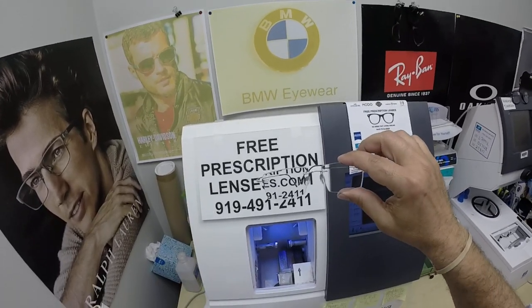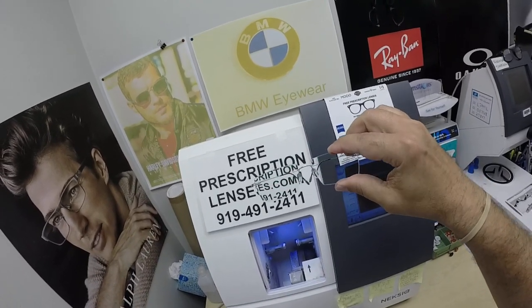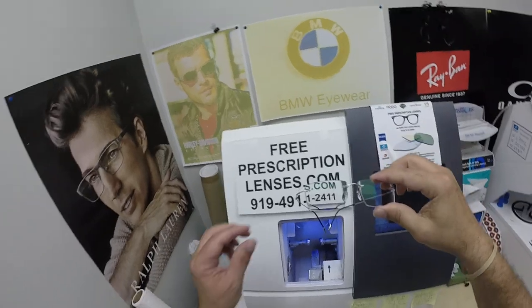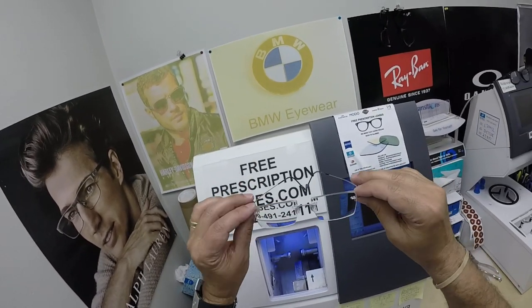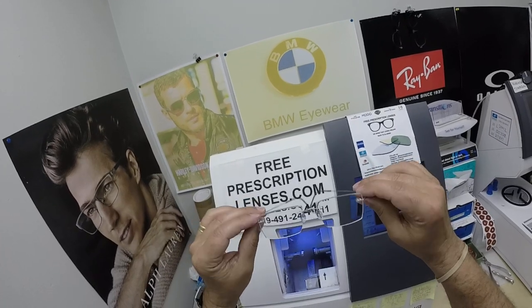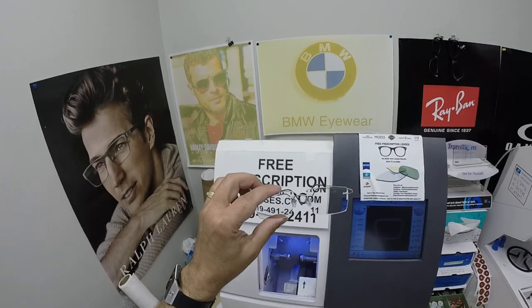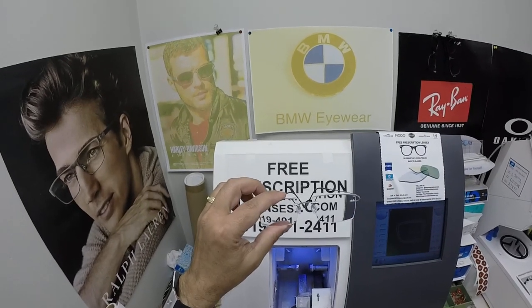He is Mr. Green, so he got green lenses with Duravision Chrome anti-glare, because it has an ever-so-slight green reflex. In certain lighting, at certain angles, you will get a residual green hue to the anti-glare coating that's on the front and back of the lens. All Zeiss Duravision anti-glares are front and back surface.